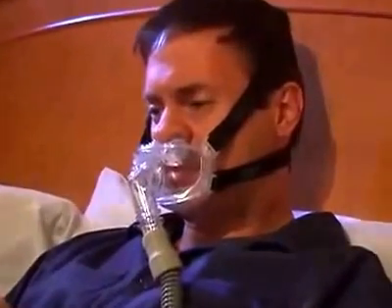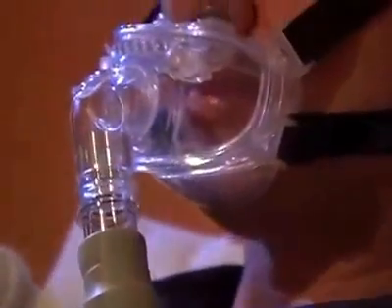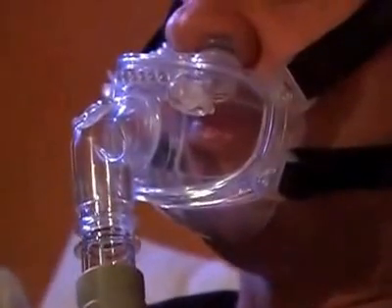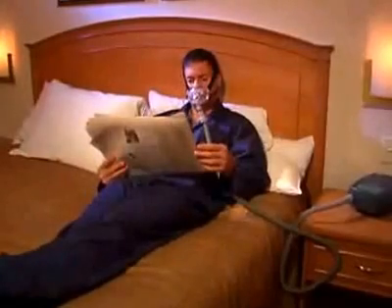Your Hybrid Interface also has a built-in flap to gently support the chin, ensuring optimal performance. This eliminates the need for an additional chin strap accessory.